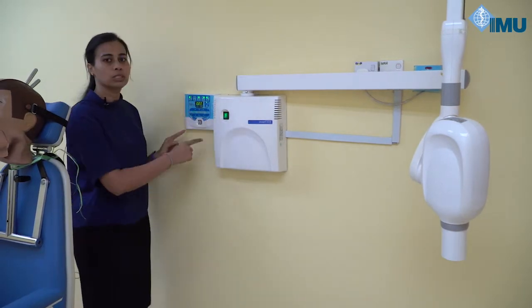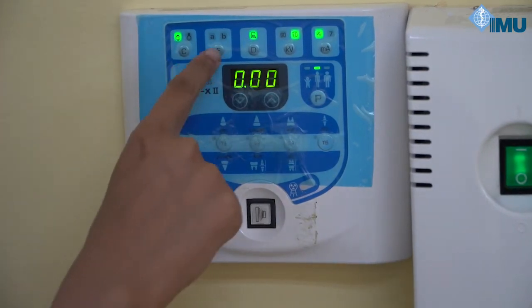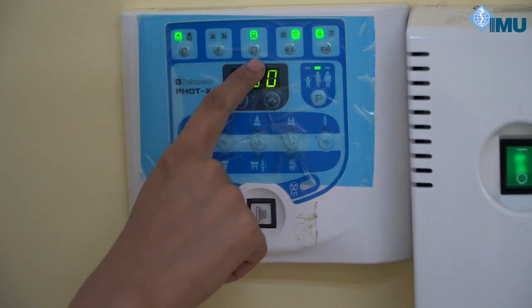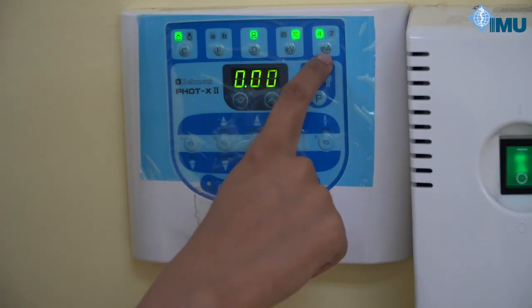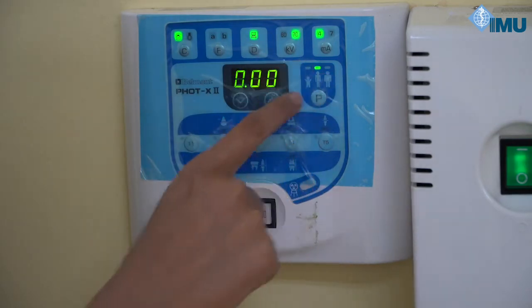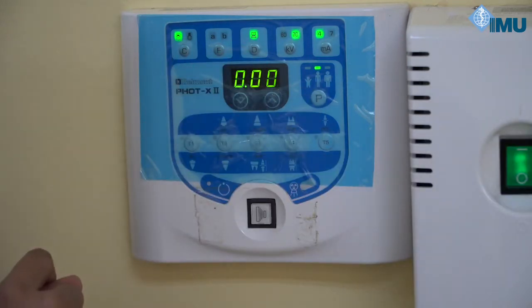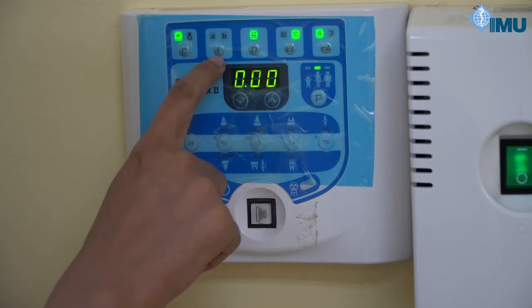Once you turn on the warning light, focus on the control panel. Here you can see certain icons: C indicates collimator, F is film, D is digital, kV is tube voltage, mA is tube current. We have to select all these parameters before proceeding. In this radiology room we have a short cone x-ray tube, so it's auto-set — no need to change the collimator.